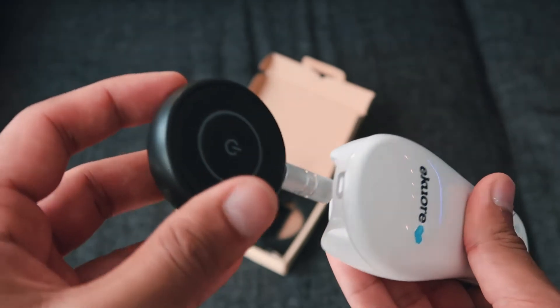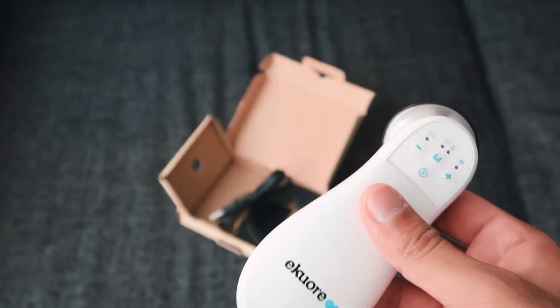I've just unboxed pretty much the whole thing off screen — that's how new I am to these things. We've got a little Bluetooth transmitter, and what looks like a headphone to headphone port so it plugs into the headphone bit of this and then into the headphone bit of there — that is now a Bluetooth stethoscope. That little device could connect to any Bluetooth headphones you've got. And then there's another headphone to headphone cable — I'm not sure what that's about, but I'm sure I'll find out. There's also another little charger, presumably to charge this little Bluetooth device.